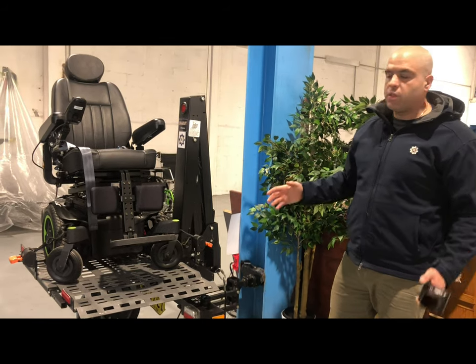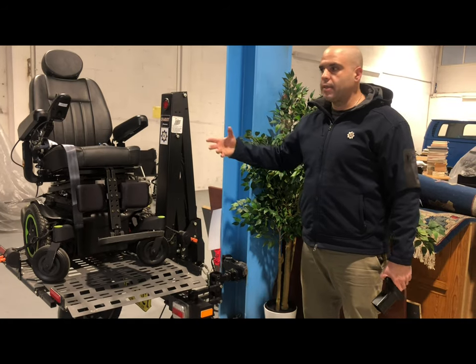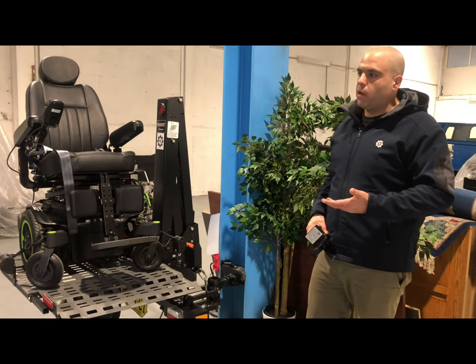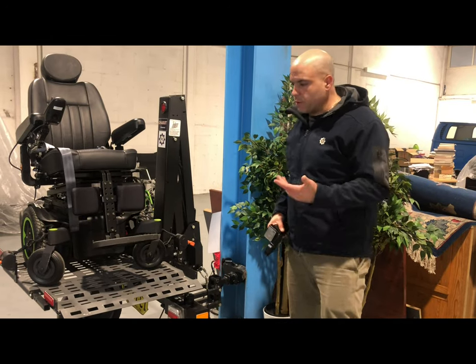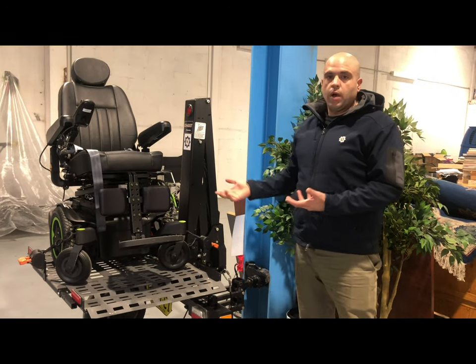It's a wonderful option for people with smaller vehicles that need to carry a big wheelchair or something like that, and they don't have the money to upgrade their vehicle. If you use a hatchback or similar, you can use this to carry your very heavy wheelchair or even your scooter.